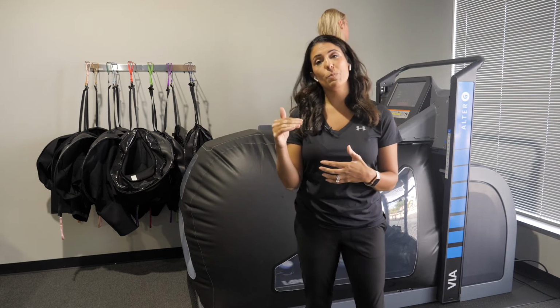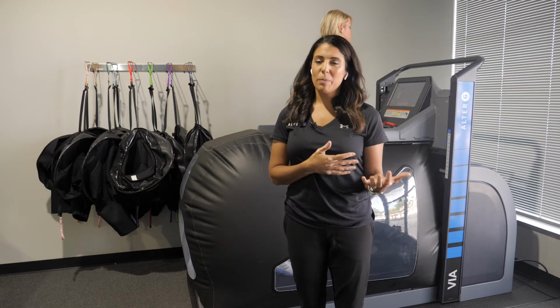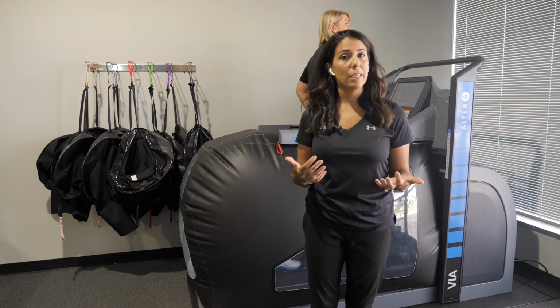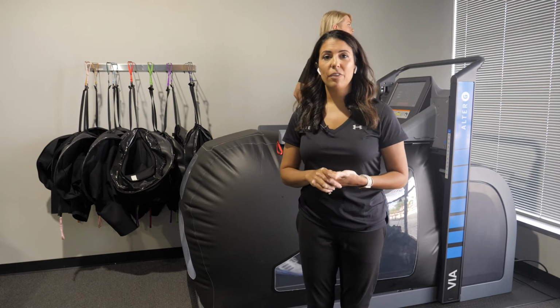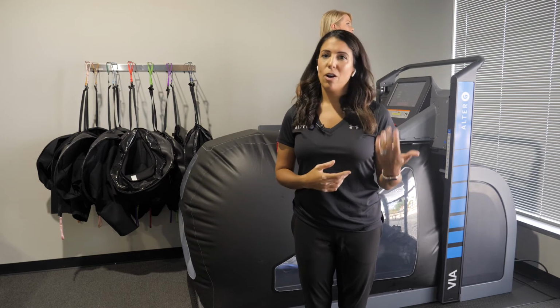Each of these parameters we can really do a deep dive into and talk about the features and benefits of. For instance, cadence is great for our runners. It's a predictor of injury. If cadence is too slow, your stride can be too long, and that can cause knee injuries, right?